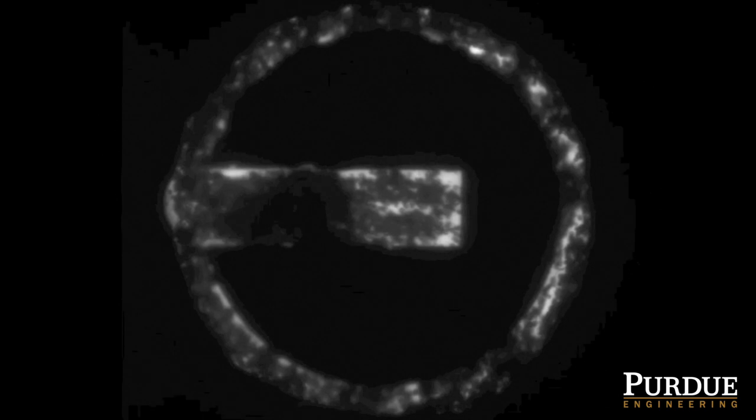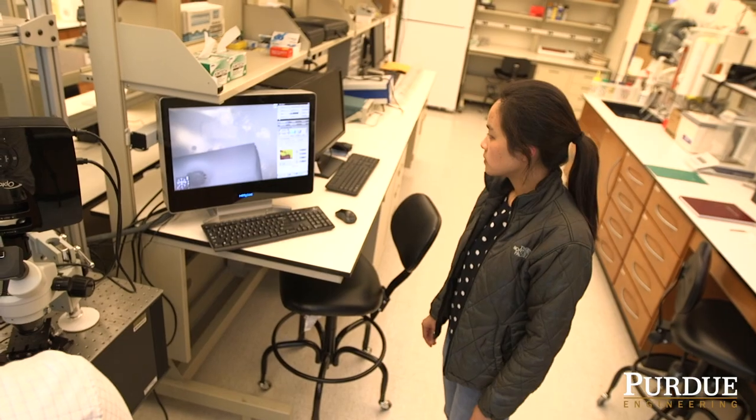When we have the devices in the body, we can apply a magnetic field from outside of the body and be able to apply a large amount of forces that can be used to repel these types of biomaterials.